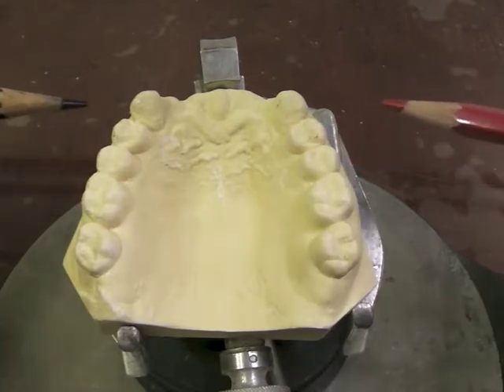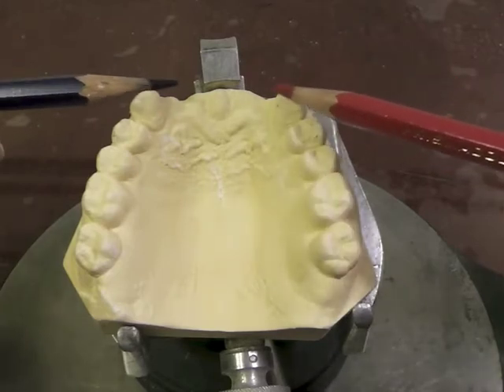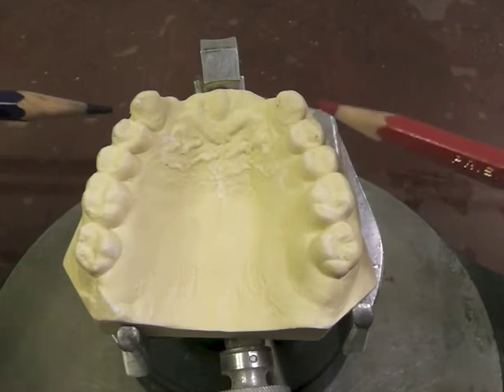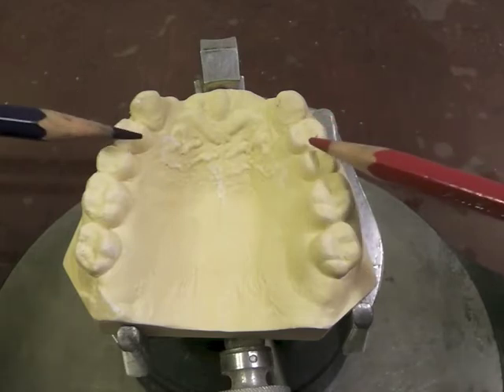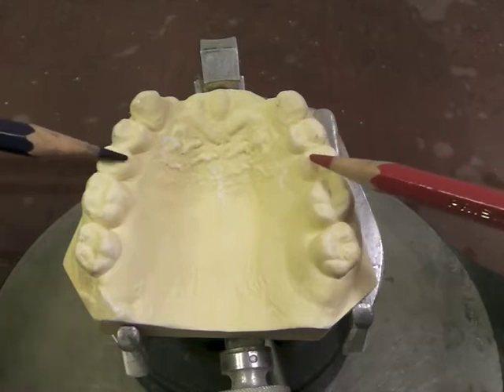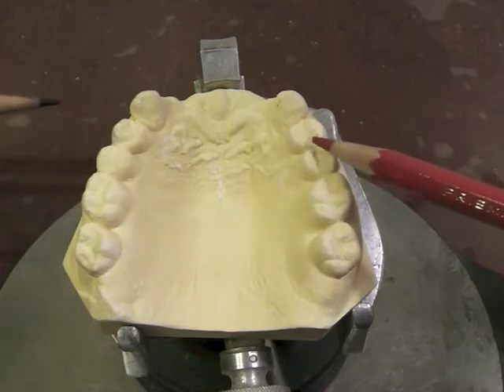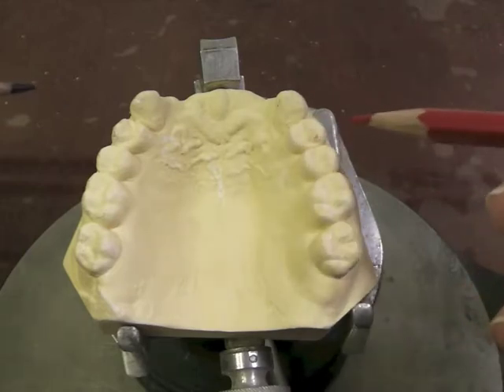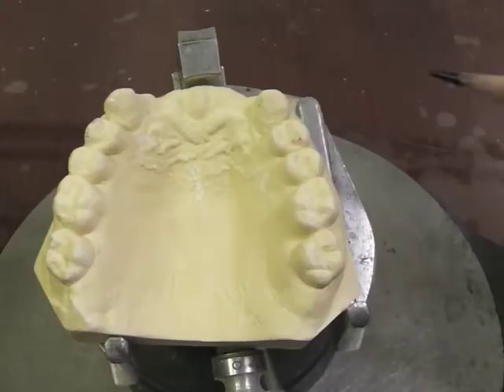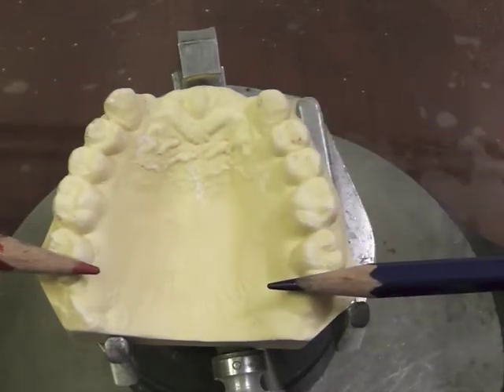We also need to have a rest next to or very near our edentulous area. So if we're going to clasp the mesiofacial of our first premolars, those clasp arms would be coming from this direction. We would have an embrasure rest between these two teeth. An embrasure rest is used between those teeth in order to prevent the patient from feeling that wedging is occurring between the teeth. We're going to have four clasps — two near the fulcrum line and two far away from the fulcrum line.